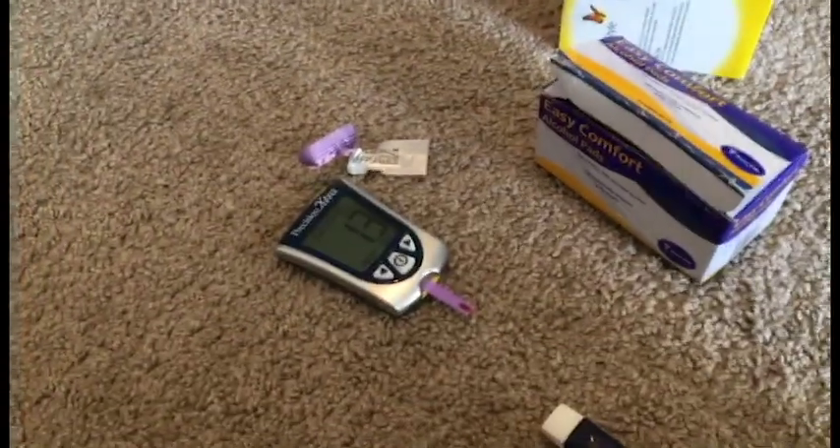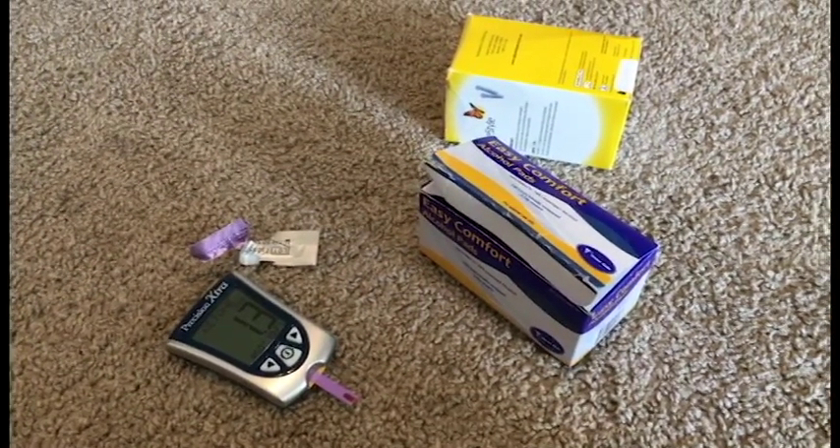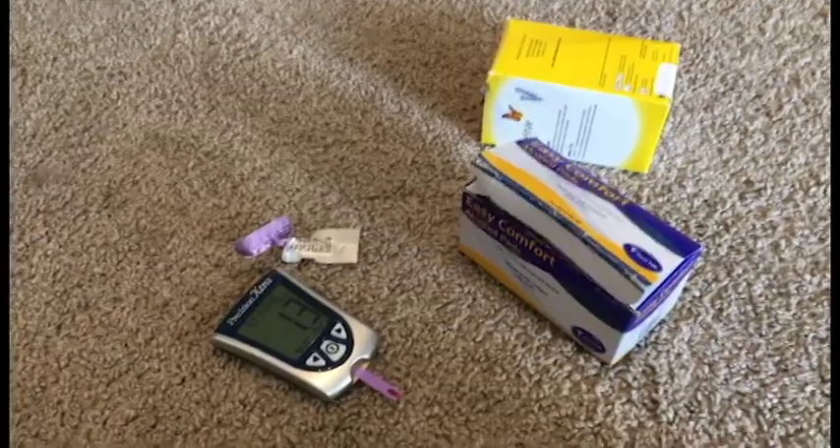1.3 — so that's great! I haven't measured my ketones in probably six months, but just from following the diet it shows that I am in a permanent state of ketosis, or keto adapted. That means fat just sheds right off me — I don't store fat, I've burned it all off. My ketone reading was 1.3, which is insane considering I last checked back in April.